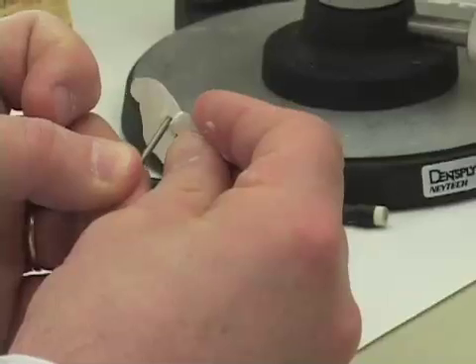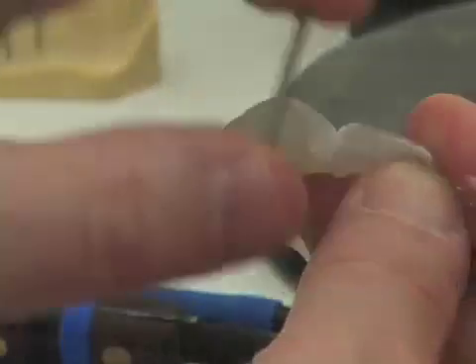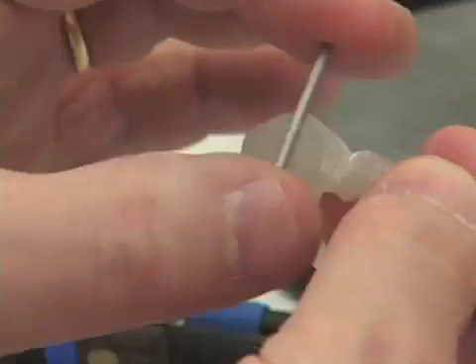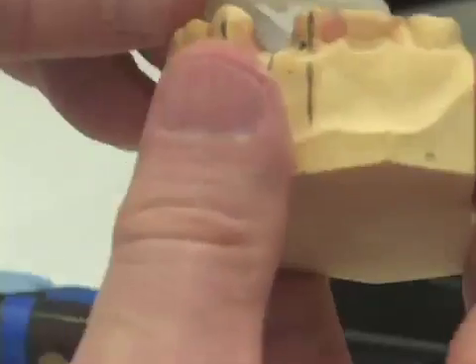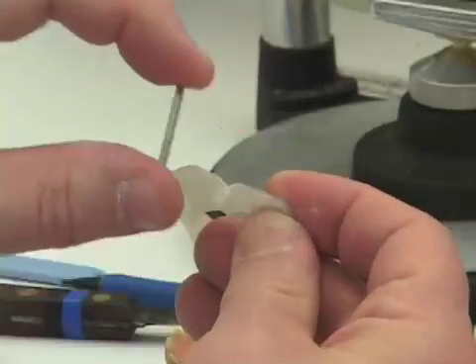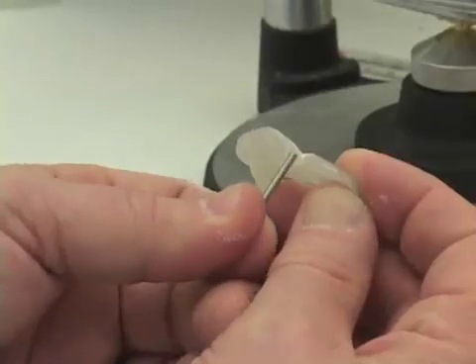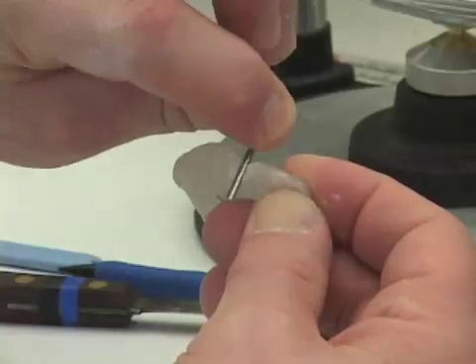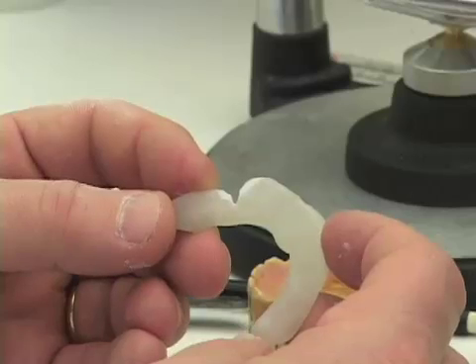When I've done that, I want to check my surgical guide repeatedly with the drill blank — when it's firmly placed in, it has no mesiodistal tilt at all, and it freely comes in and out from the buccal. So those are our requirements: the guide fits in a stable fashion on the occlusal surfaces of the teeth, and the drill blank passes in and out from the buccal aspect freely. I always check this carefully by threading it up from the bottom or down from the top, making sure there's no resistance to its removal at all. This completes the fabrication of our smaller drill guide for the 2.2 millimeter drill.